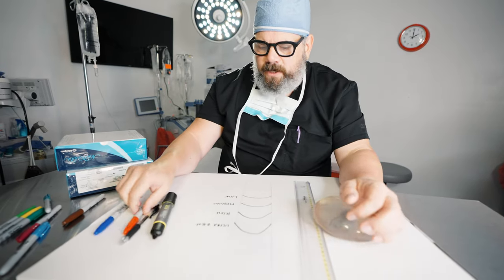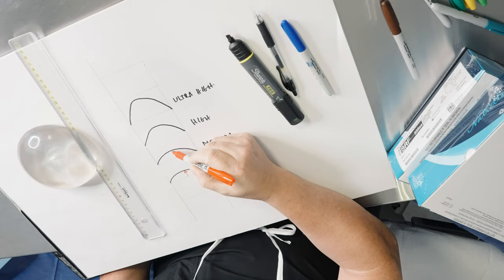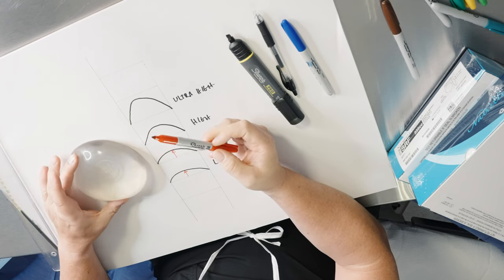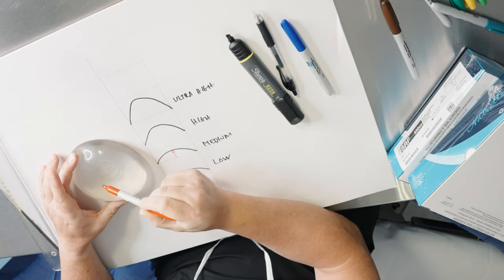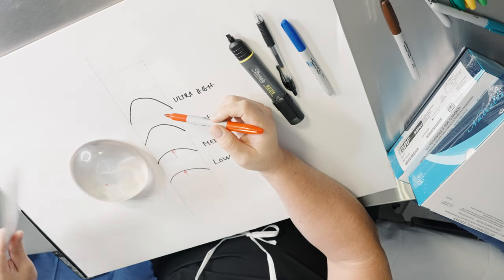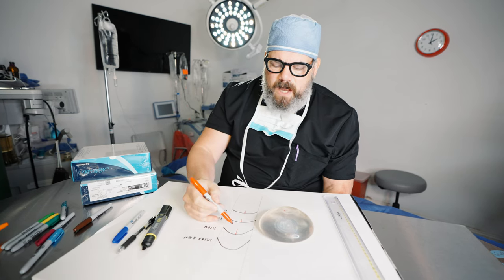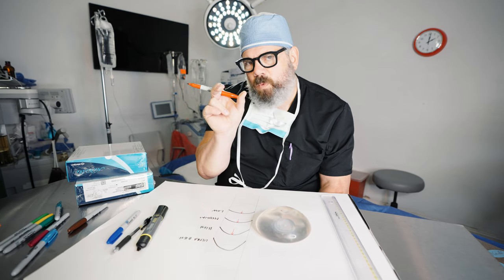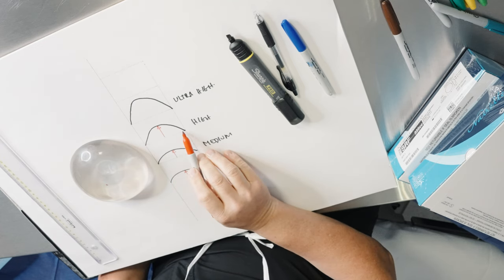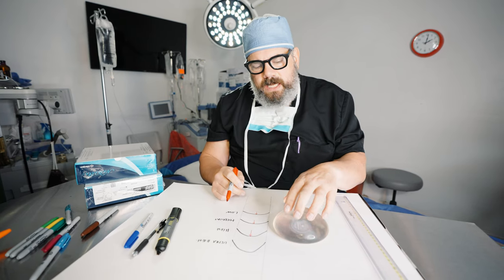What the profile is referring to is actually the amount of projection from the chest wall. If you look at a real implant here — this is a high profile implant — we're talking about the distance from the top of the implant down to the bottom. That's a cross section of the implant, as if you took a knife and cut it. A high profile has more projection for the same amount of width, meaning there's more silicone and it's a larger implant. That's why it's called a high profile implant — it's giving you more oomph.